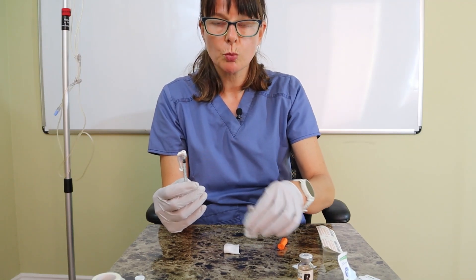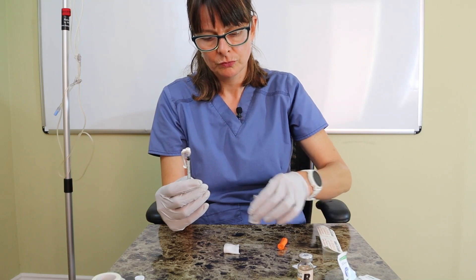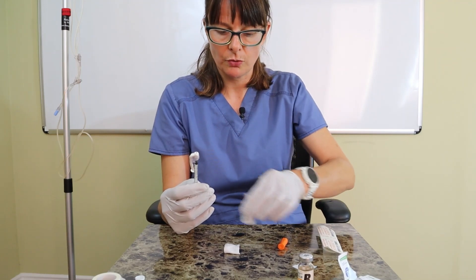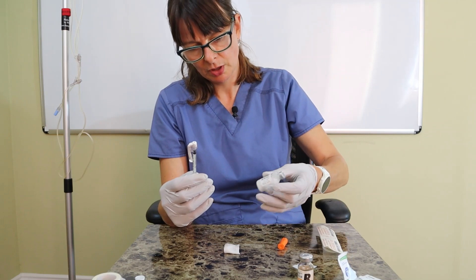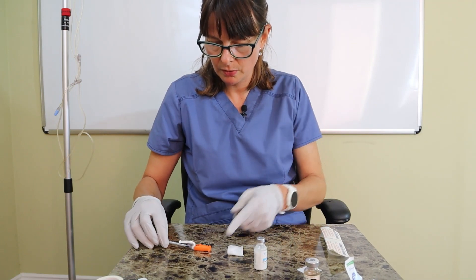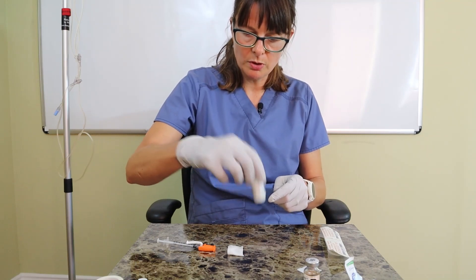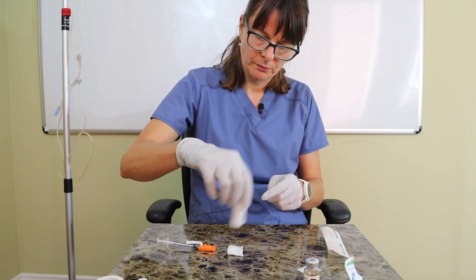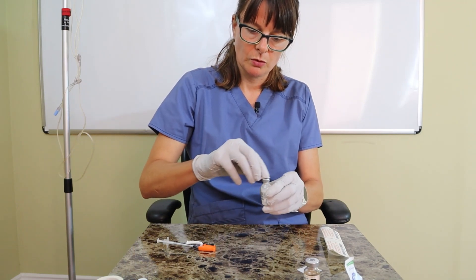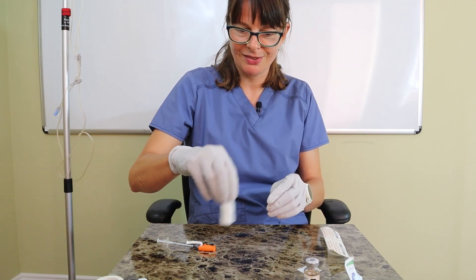The sediment has settled in the NPH vial, so I'm going to gently swirl the vial. This helps with concentration — if the insulin isn't fully dissolved, you won't get the correct dose. I have a little more sediment, so I'll set my syringe aside carefully and swirl until it's completely dissolved. Since I'm not sure if I touched the rubber stopper, I'll give it another wipe and continue to swirl so it doesn't settle again.